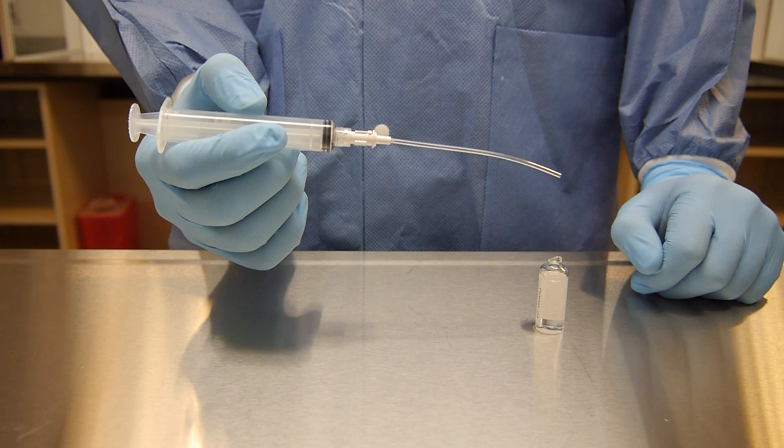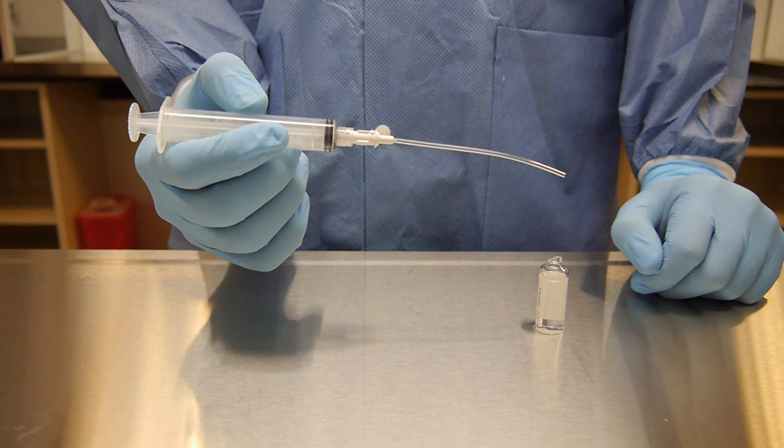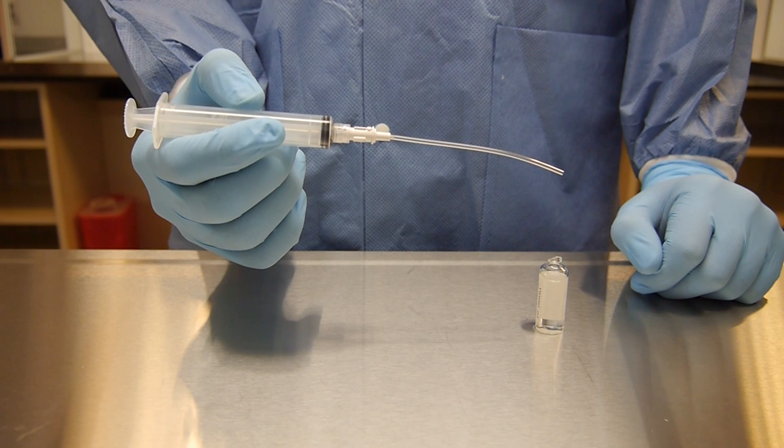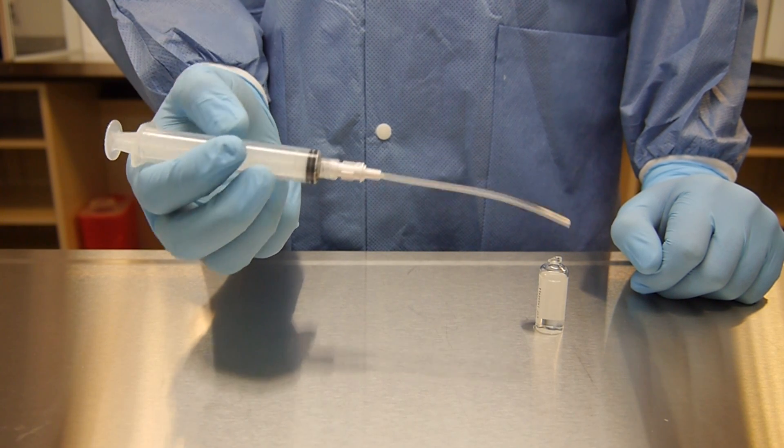Use the technique described in the ampule breaking video to break the ampule. Open the syringe and filter straw packaging and attach the two. Remember the entire filter straw is considered a critical site.